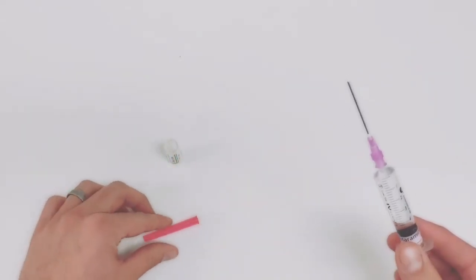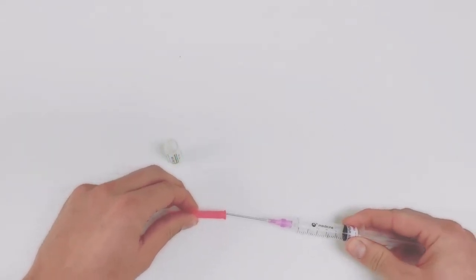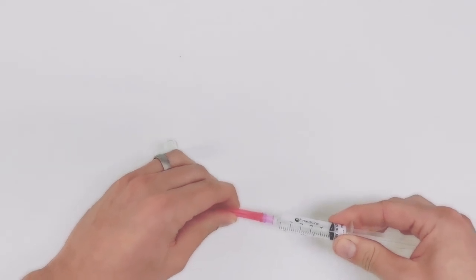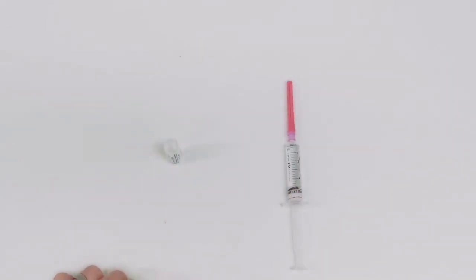Now you're not supposed to really resheath needles, but this is a blunt filter needle, so if you're doing it safely it's not going to do too much harm.